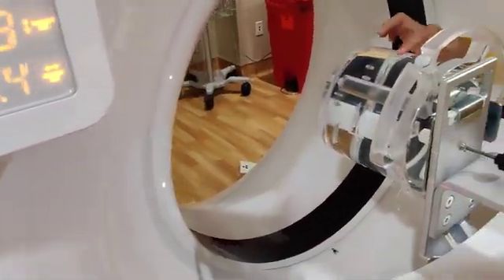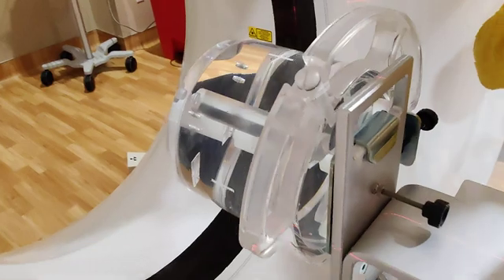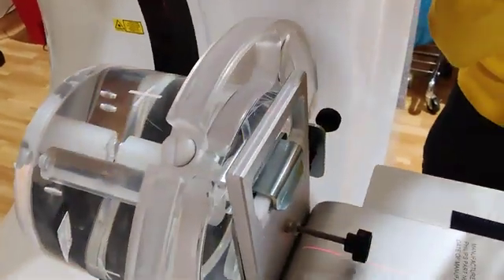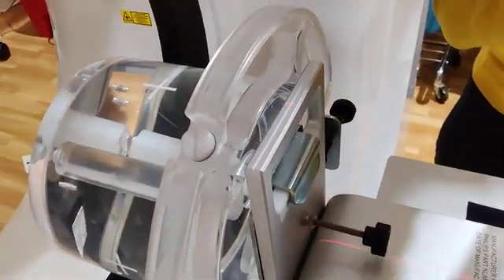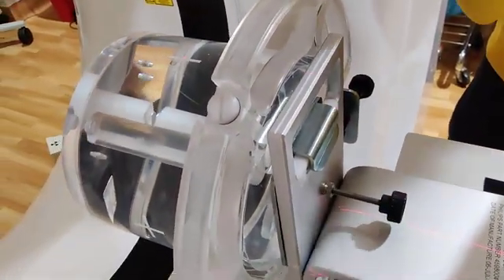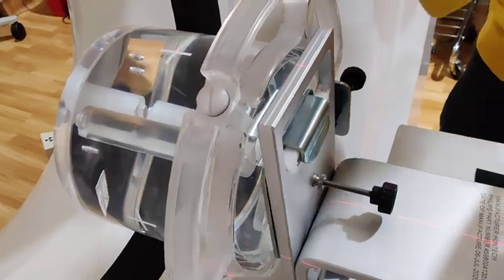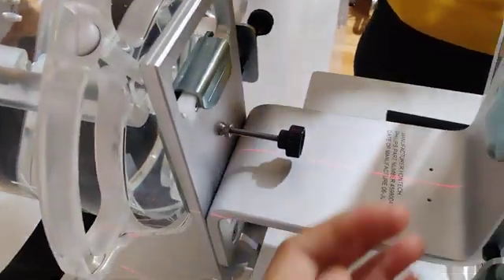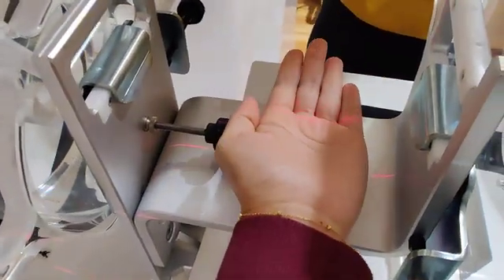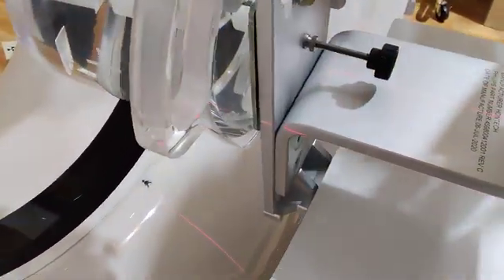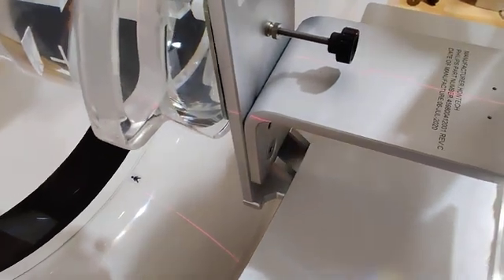So what we found yesterday is the laser is a little bit off, and that's why Dan came in to adjust the lasers. They can get a little wonky when people are hitting the stuff. That connection is all inside here, so it's very sensitive. Just giving you a heads up.